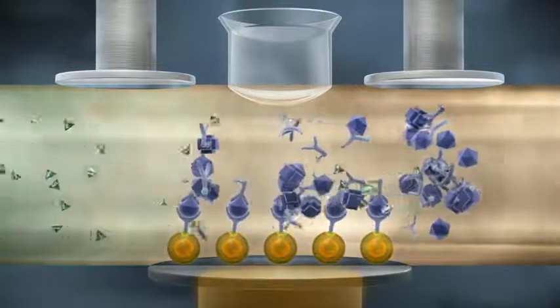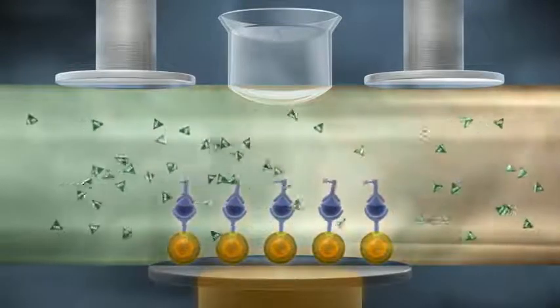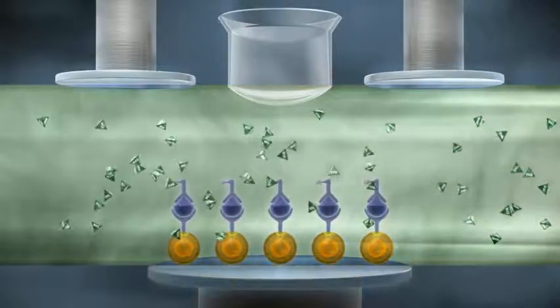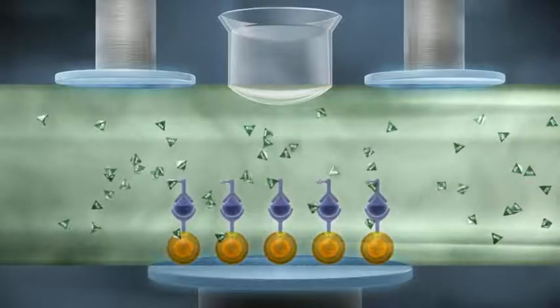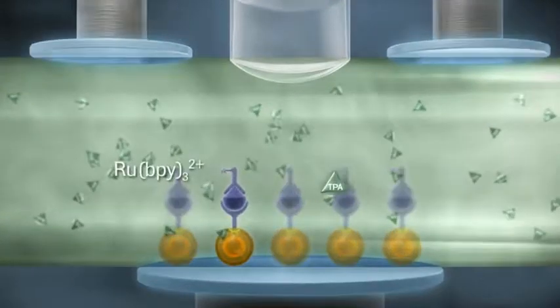Procell solution is introduced to separate the bound immunoassay complexes from the free remaining particles and to provide TPA, which is essential for the ECL reaction.